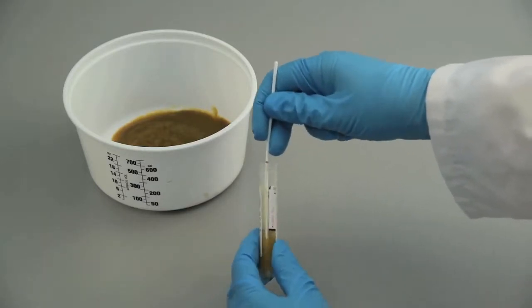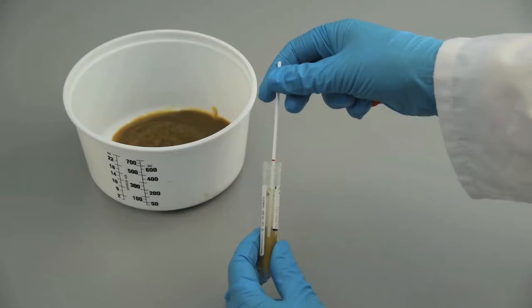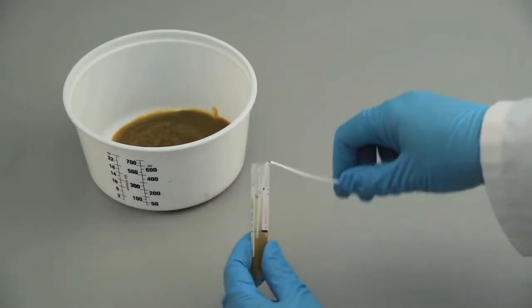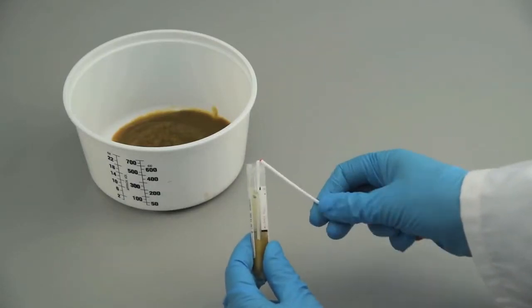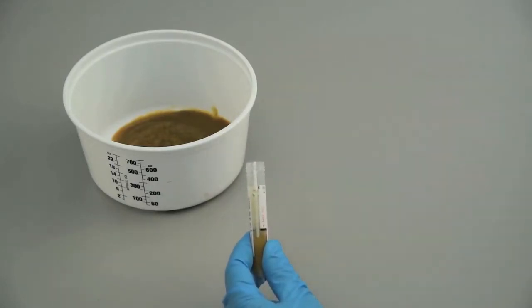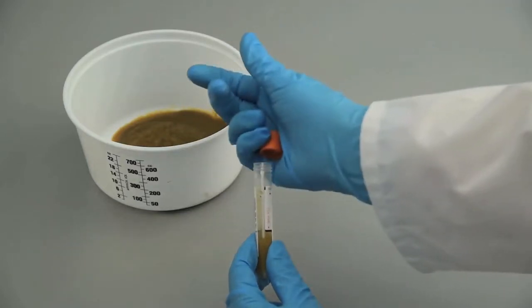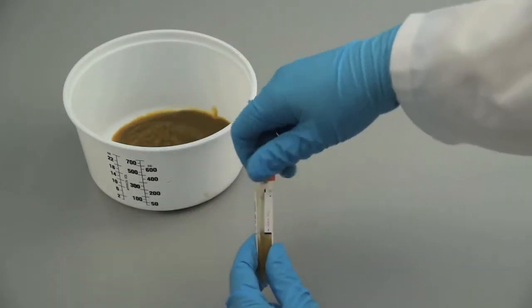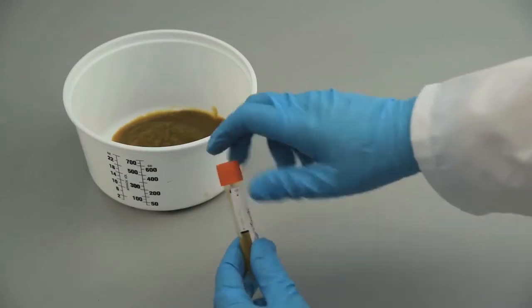Hold the tube away from your face. Holding the swab shaft at the end, bend it at a 180 degree angle to break it off at the marked break point. If needed, gently twist the shaft to completely remove it. Discard the broken upper part of the swab shaft and tighten the cap.